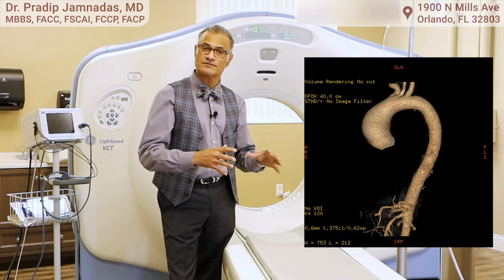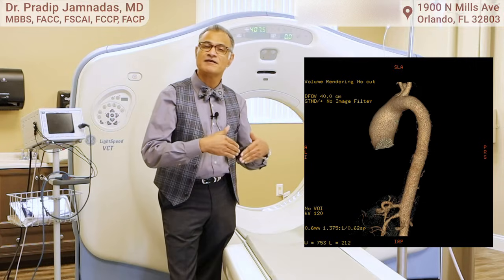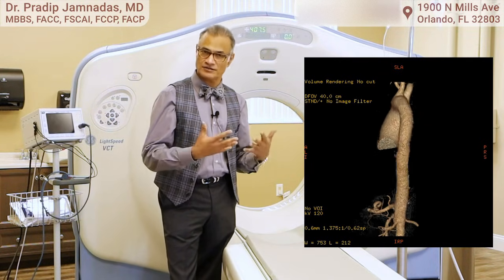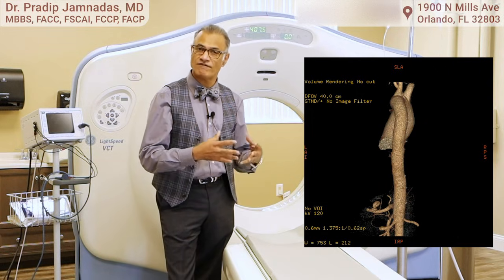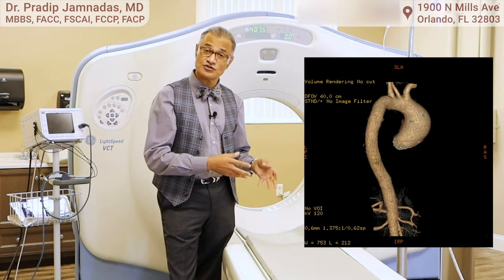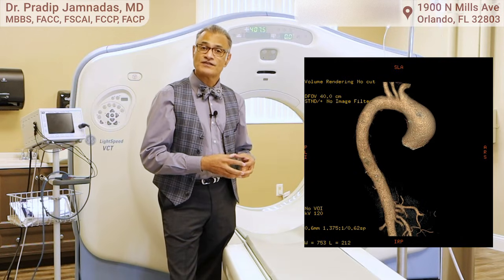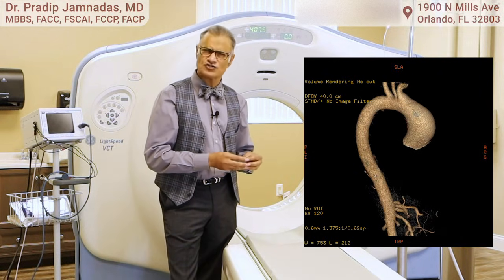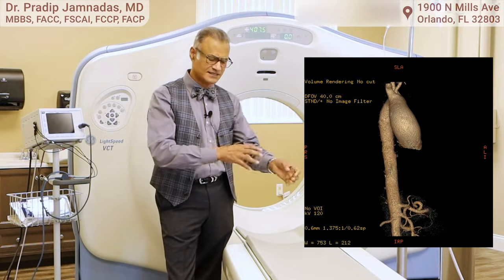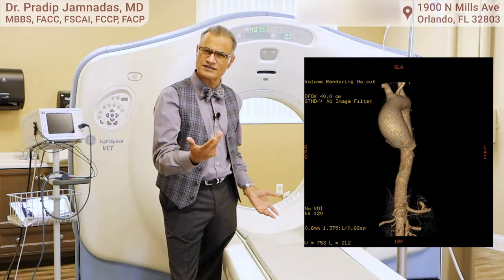So it's not just for the coronary arteries — this is a very versatile test. In today's world, more and more patients are going to get a CT scan in a matter of minutes to give us a lot of information about heart muscle function, valve function, coronary arteries, and aneurysms. We also use it to evaluate the pericardium, which is the lining around the heart. If you're allergic to contrast, we premedicate the patient. Otherwise, it simply involves an IV, the injection of the dye, and the scanning process.